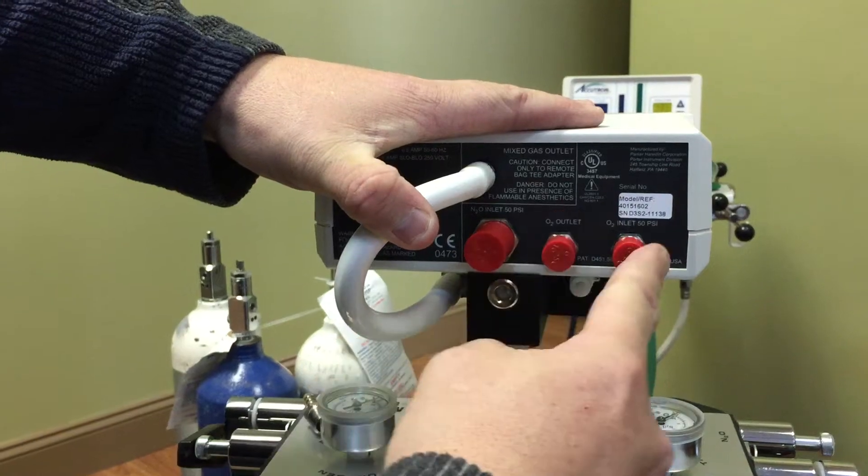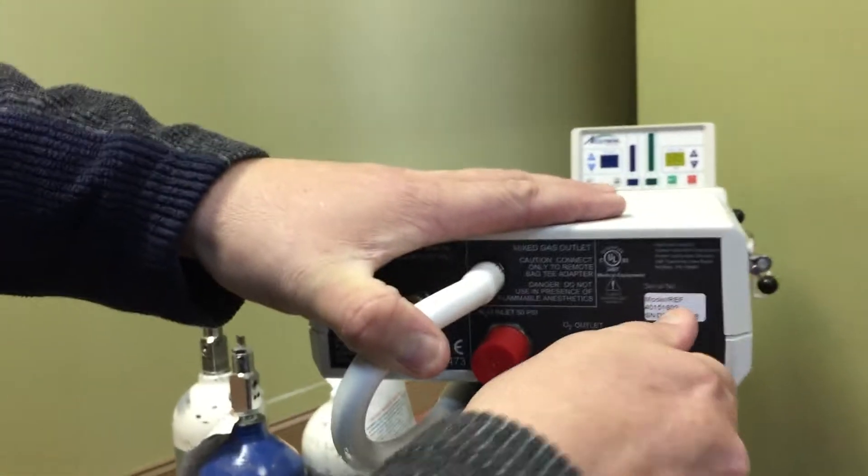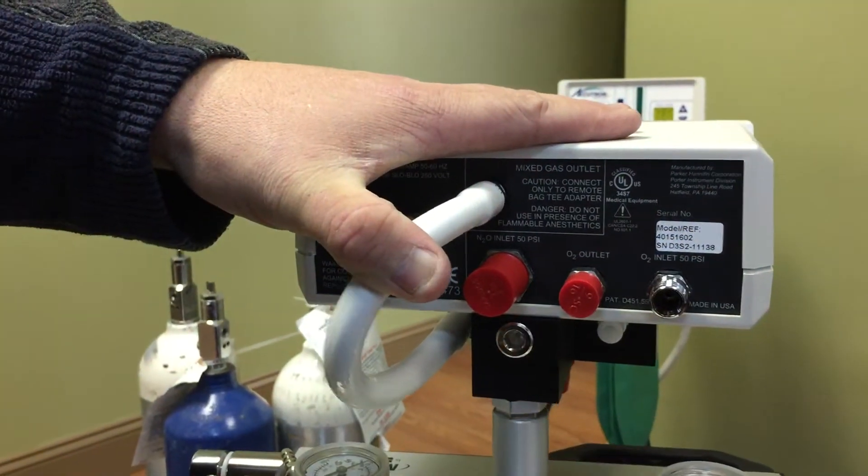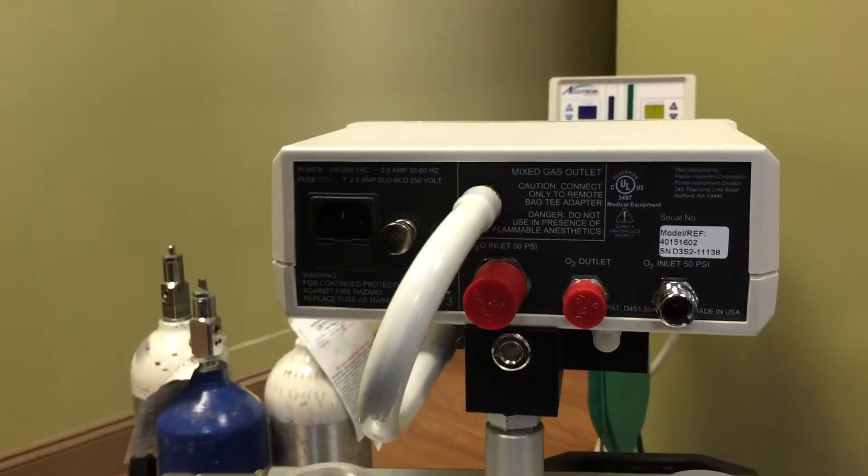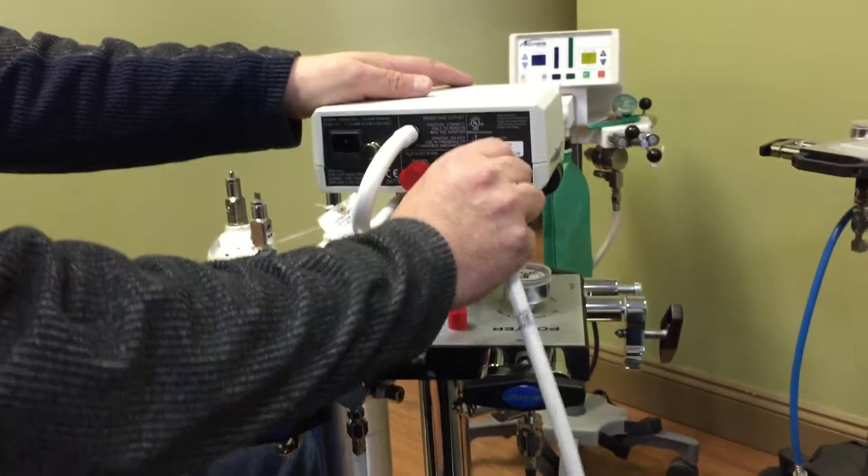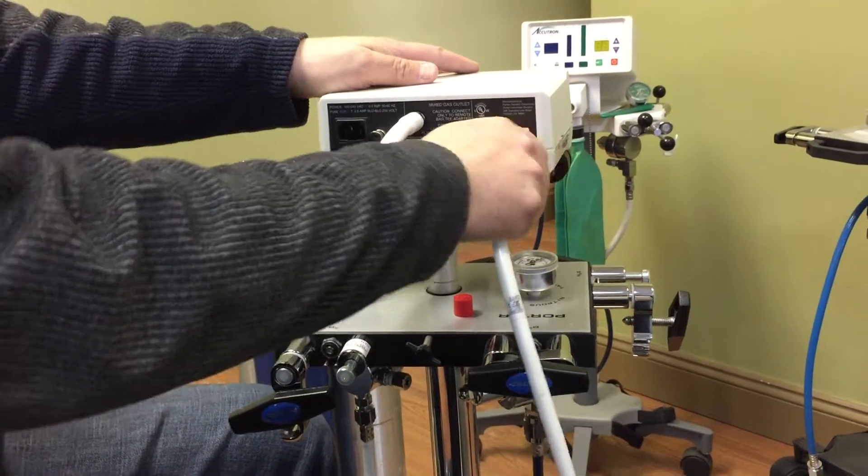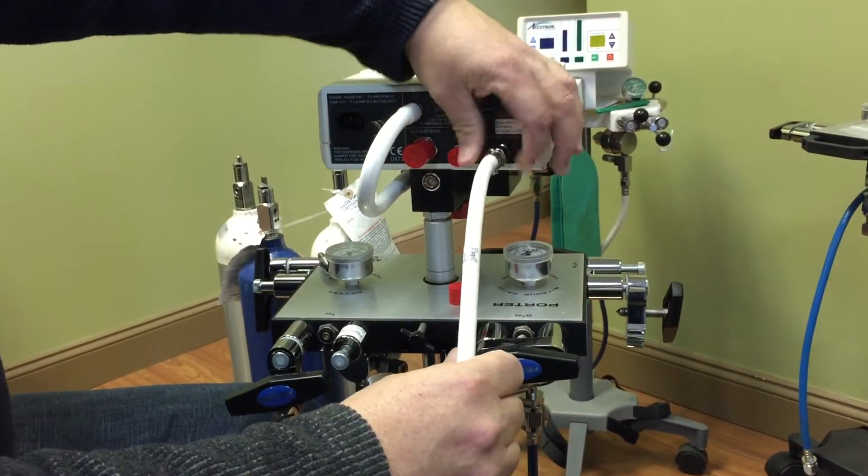And here we have our oxygen inlet, 50 psi. So what we're going to do is we're going to bring up our oxygen and screw that right on there.